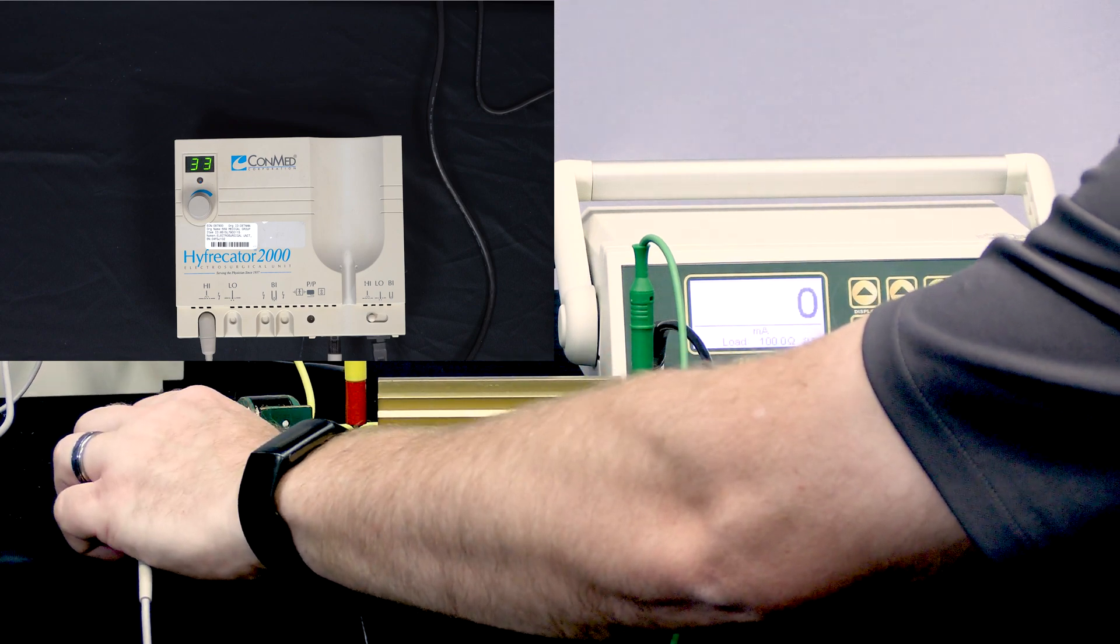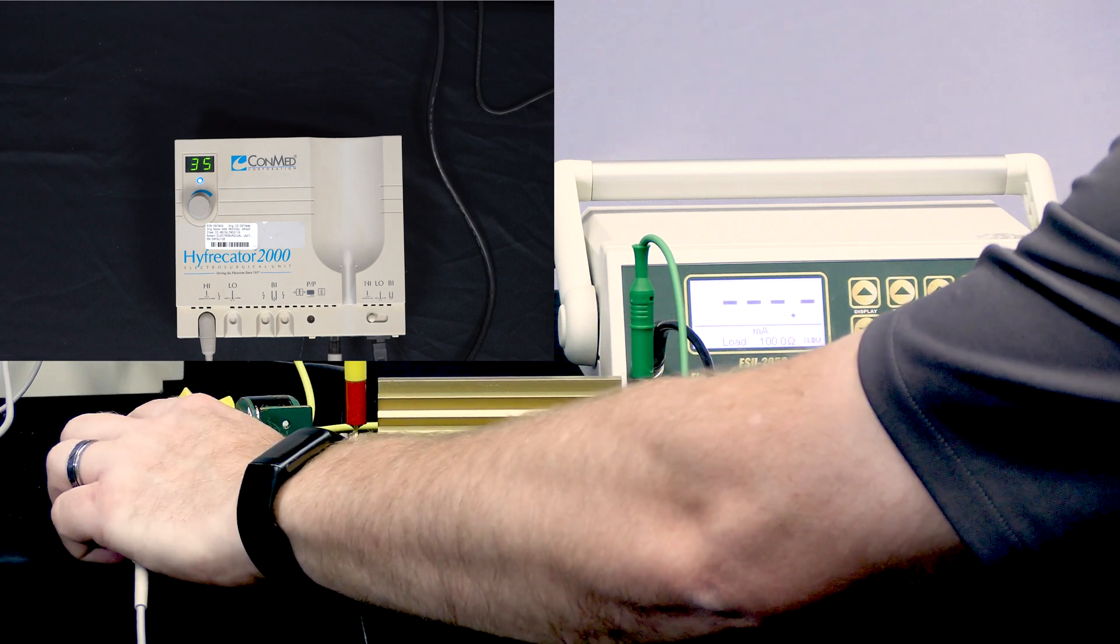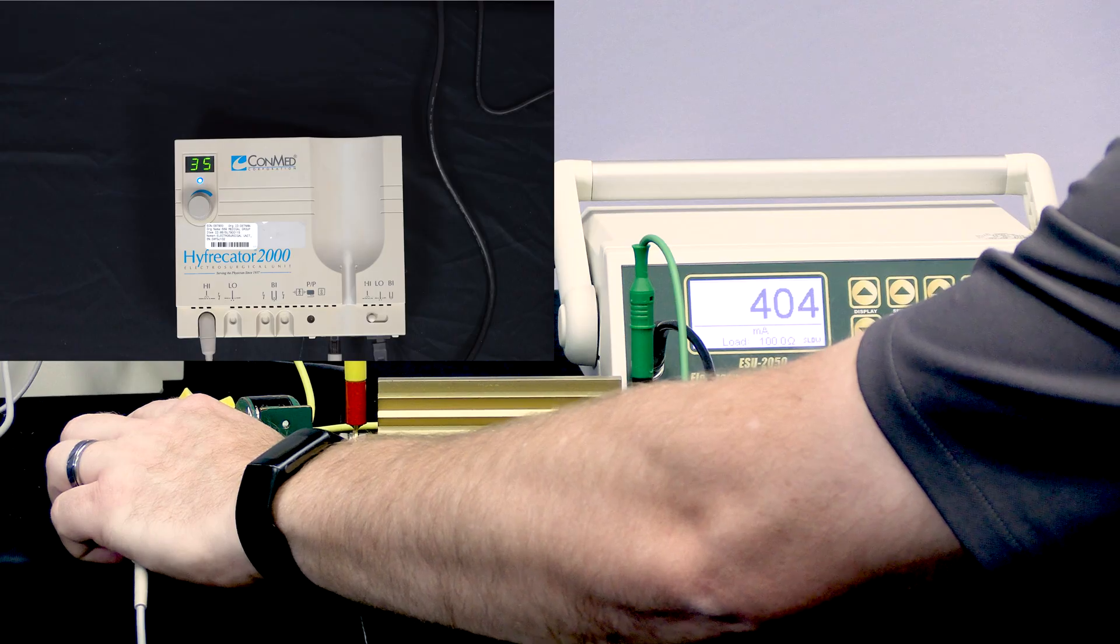We can change the power settings with this generator right from the scalpel, and we can test all of those different outputs of the generator.